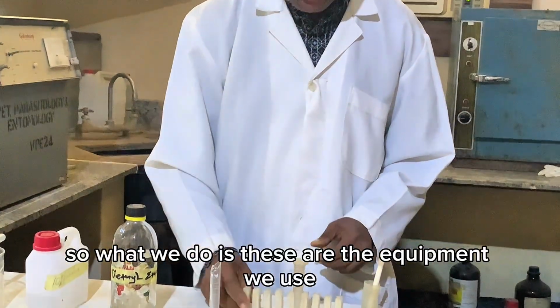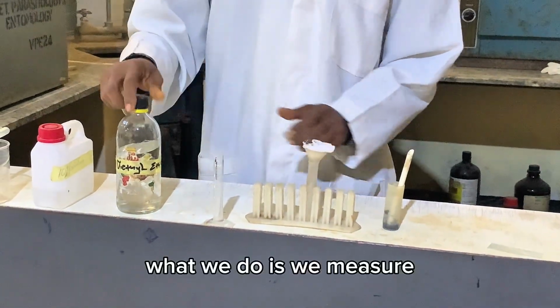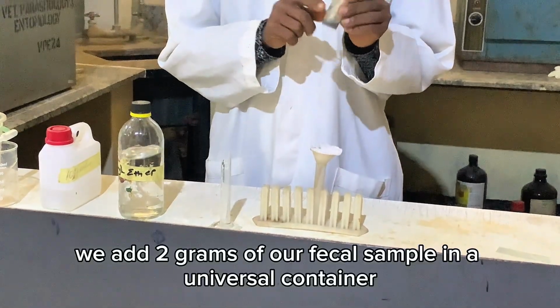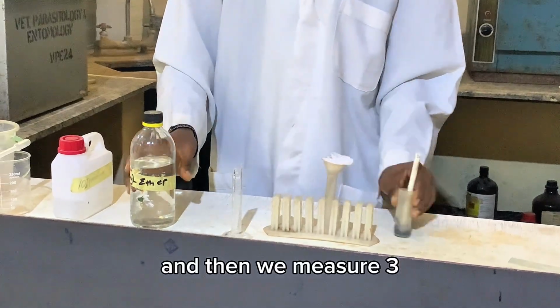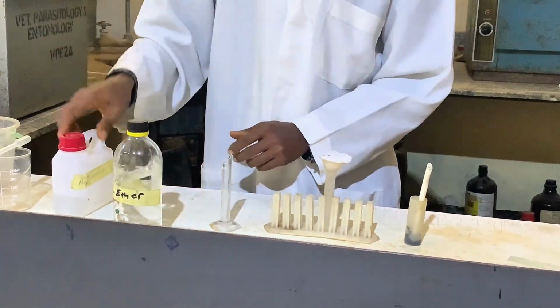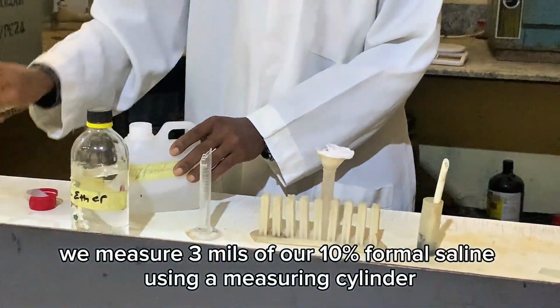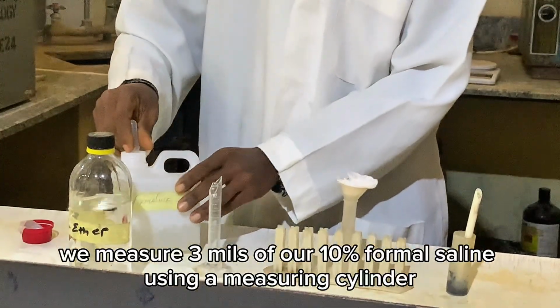So these are the equipment we use. What we do is we add 2 grams of our fecal sample in a universal container, and then we measure 3 mils of our 10% formal saline using a measuring cylinder.